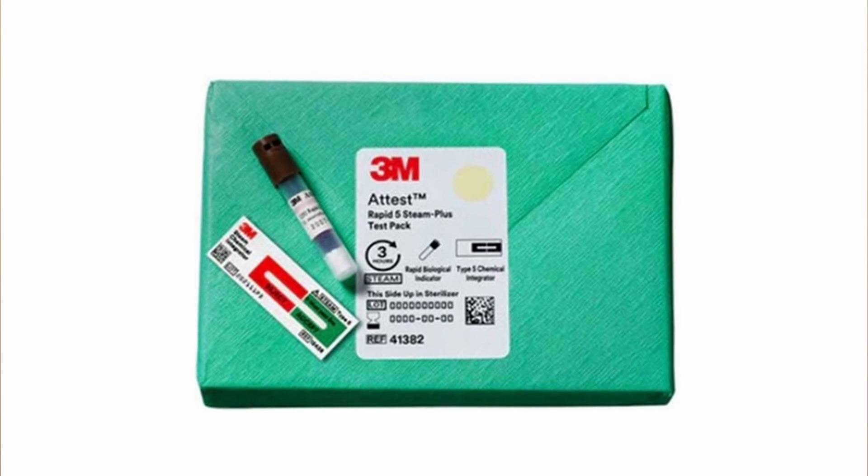You know those packs that the biologicals usually come in? Like if you order from 3M, they're usually that rectangular pack that has the green wrapper on the top. And once you open it, it's a stack of cardstock, and in the middle of the cardstock is where the biological is — and that is a process challenge device. That device is made to prevent the easy access of steam or chemical penetration.